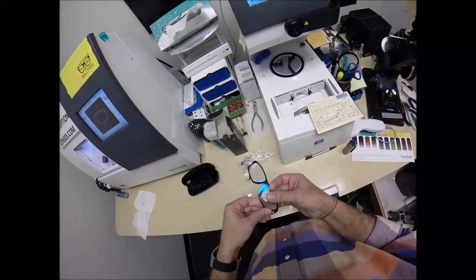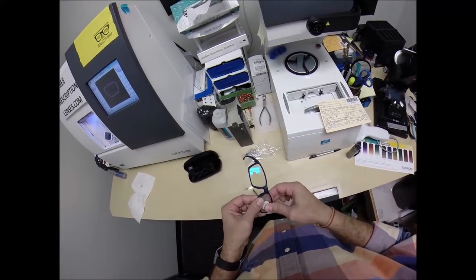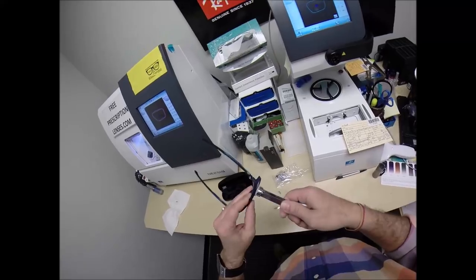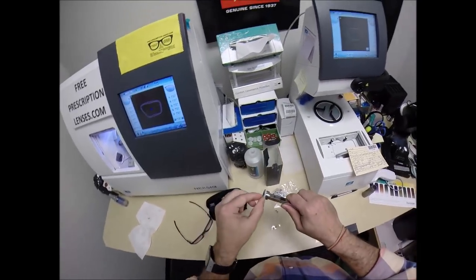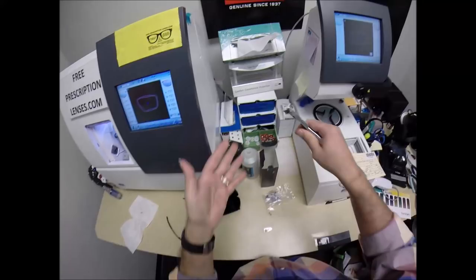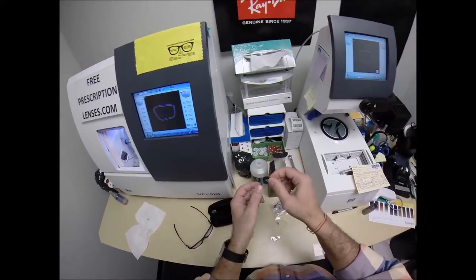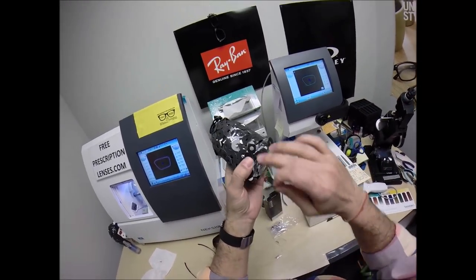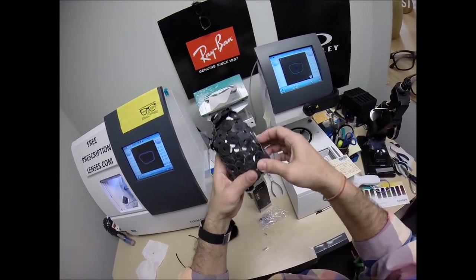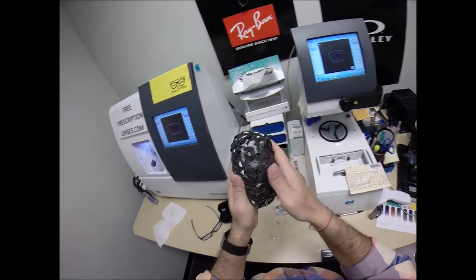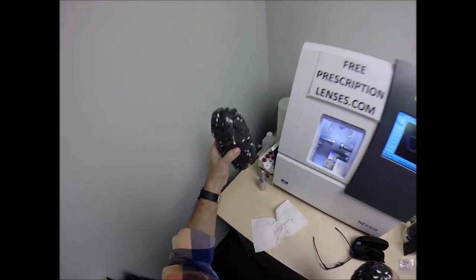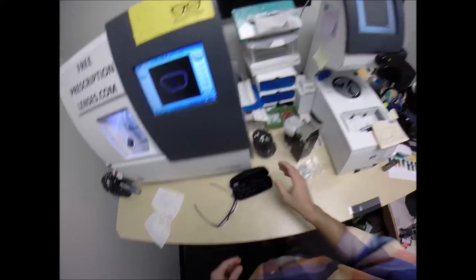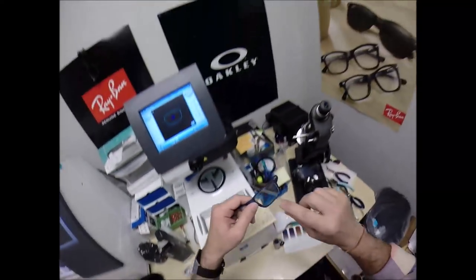I'm going to tuck this in at the outside corner using my thumbs pressed out the nose. It snaps right in, the cold mount. Pop the block off. Pull the sticker off. Use my hand-approved drying method. Come down here to the lensometer. I'm going to put it in just above that black dot, which is your pupillary distance.